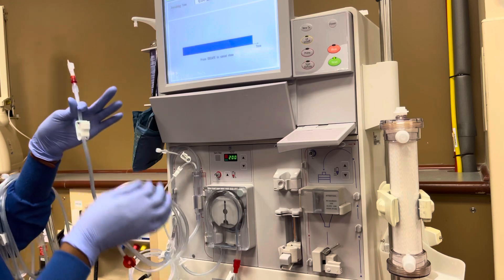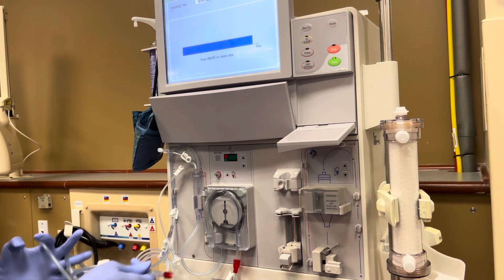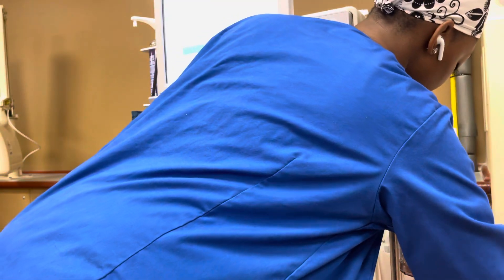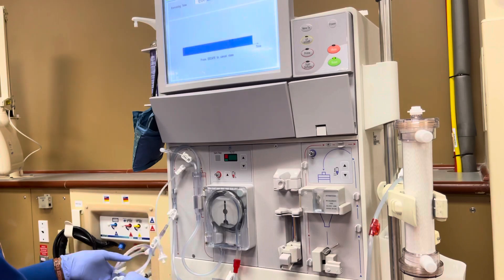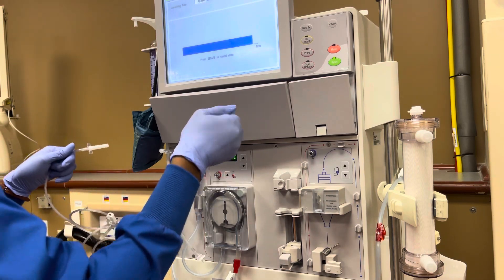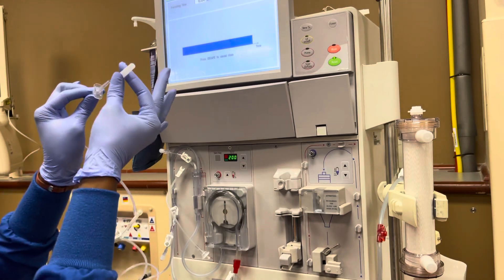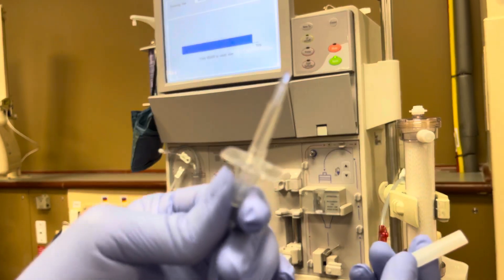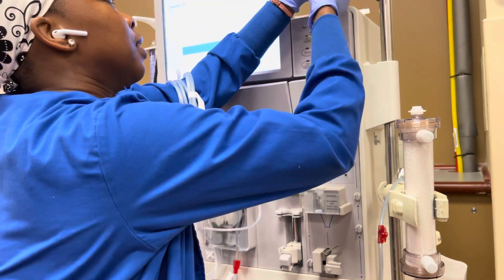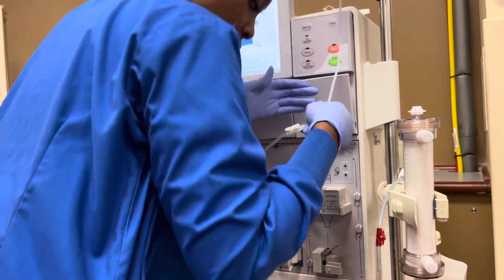I don't clamp my arterial now. I'm going to show y'all how I do it — instead of me keep saying this just worked for me — I'm going to place this in the bucket on the side and show you the bucket. Then this is my saline line right here, I'm just taking it off, and I place my cap right here on the top of my saline needle. Then you want to use gloves, as you can see I have on, anytime you're touching the machine.